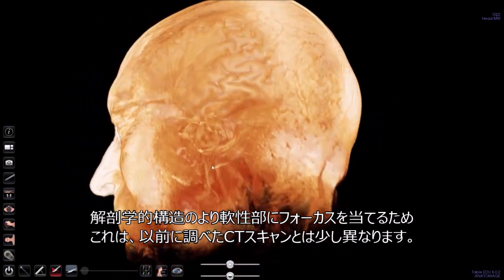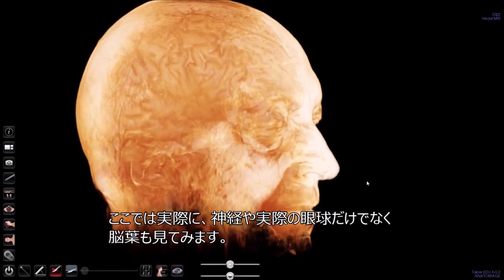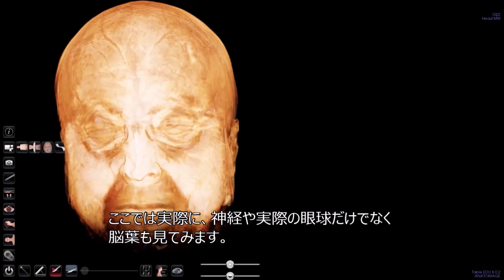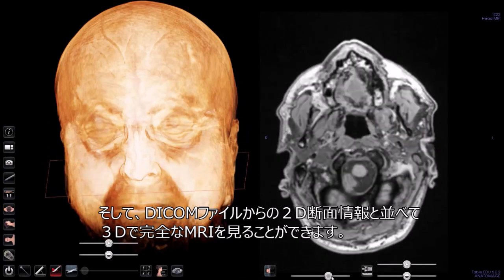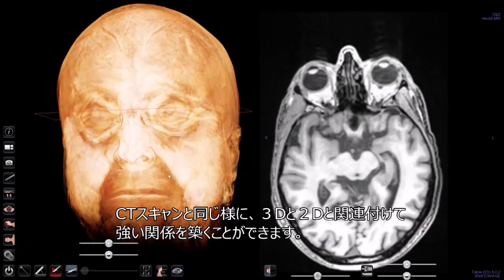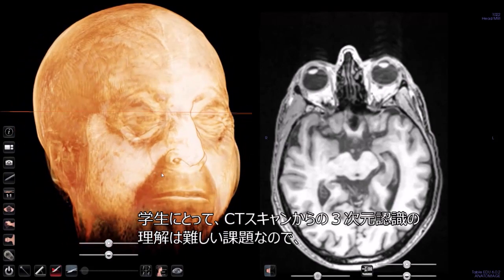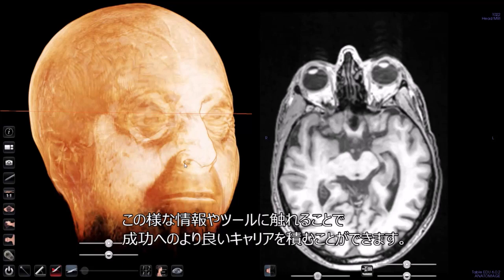So we'll actually be able to see lobes of the brain, as well as larger nerves and the actual eyeballs here. So what we can do is see the MRI fully in 3D, side by side with the 2D cross-sectional information from the DICOM file. And so similar to the CT scans, we can interact with this, relate 3D to 2D immediately, and build a stronger relationship between the two. For students, 3D comprehension of CT scans is a challenging topic. And so exposing them to this type of information and this type of tools allows them to better succeed in their careers.